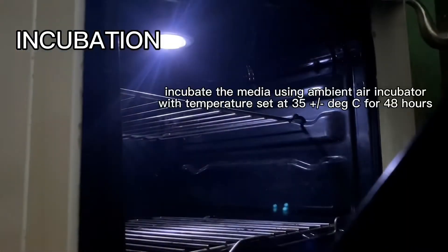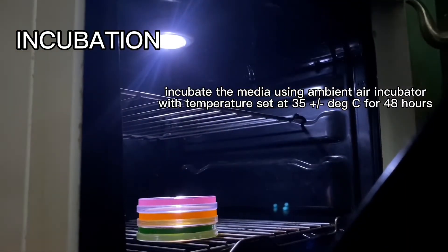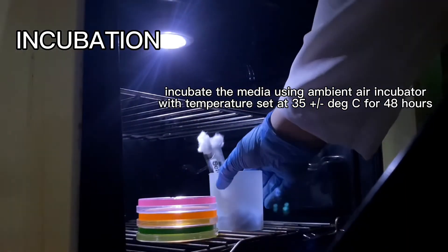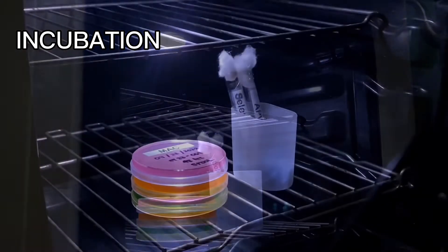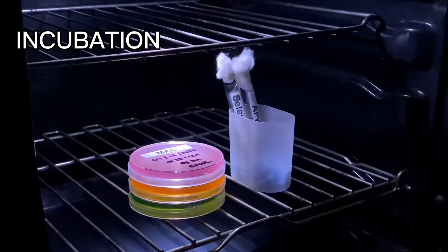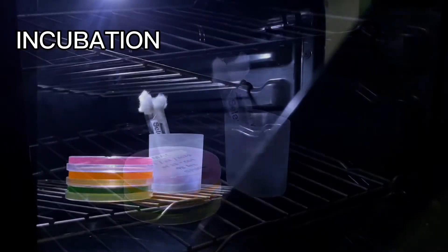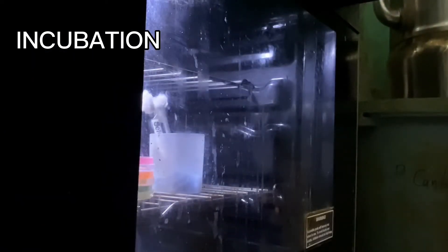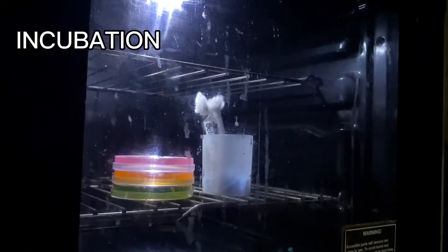After plating all the media, proceed to incubation. Incubate the media using an ambient air incubator for 48 hours. Always remember that plates should be facing downwards, like this one.